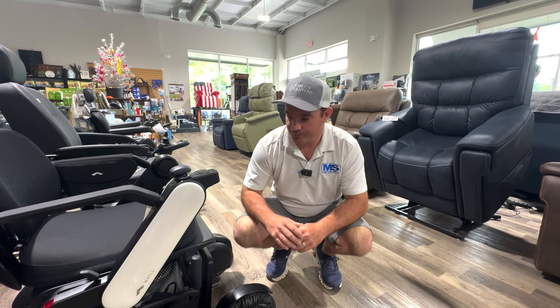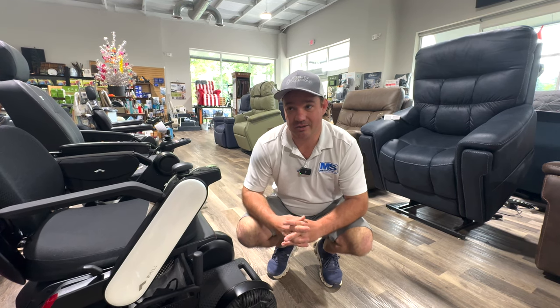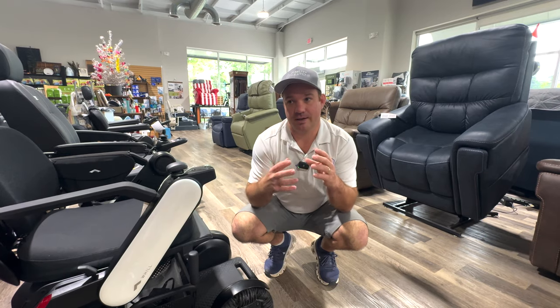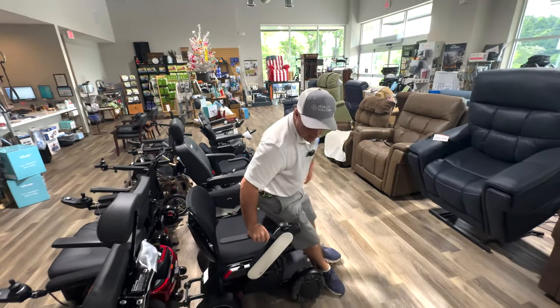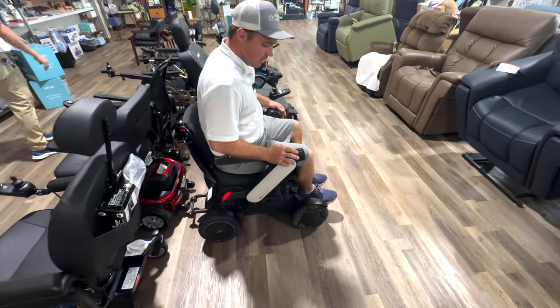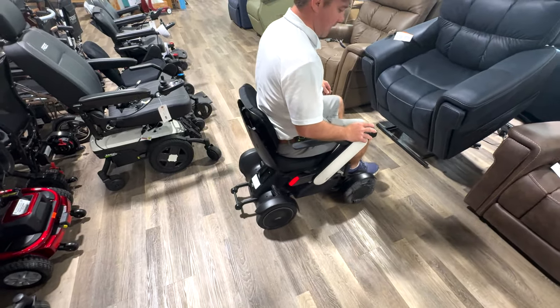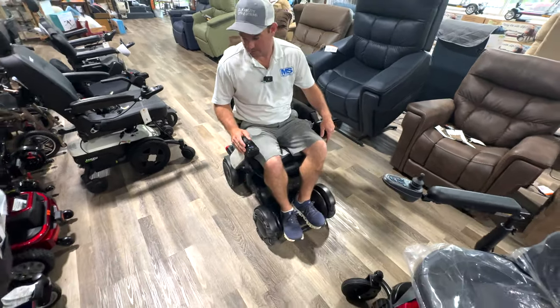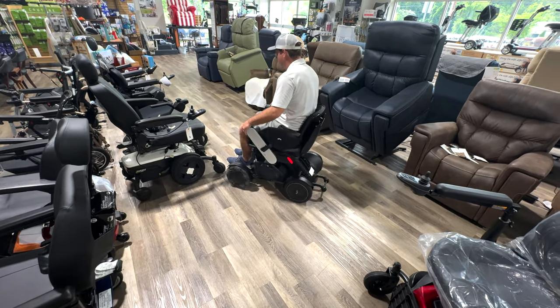That's really, really cool. It can be disassembled and it does have Bluetooth technology that can give you some diagnostics — what's wrong with it, you can lock it out. There's a lot of stuff in that app that you can read. So how this works with turning: there's a bunch of little wheels on this front, so if I'm going to turn it around, it just allows those caster wheels to spin. Really nice.